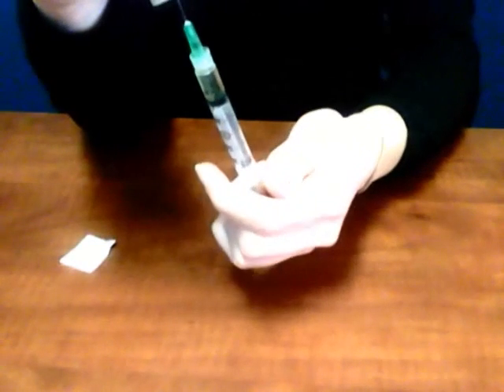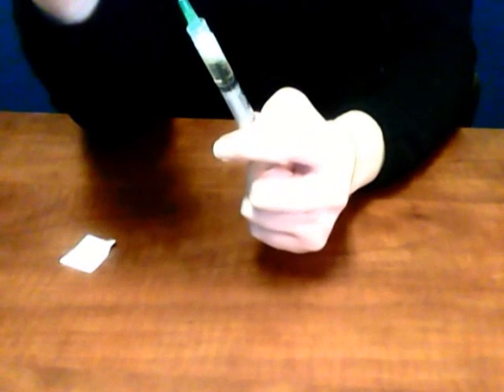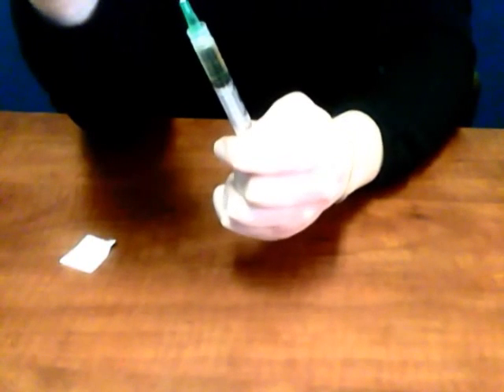If you didn't get enough medication, pull it up to the 1 ml mark — you'll have to pull back on the plunger again. Make sure that the tip of your needle is underneath the top of the liquid. If there are some small air bubbles, that's okay — just make sure there are no large ones. Then turn the vial over and pull out your needle.